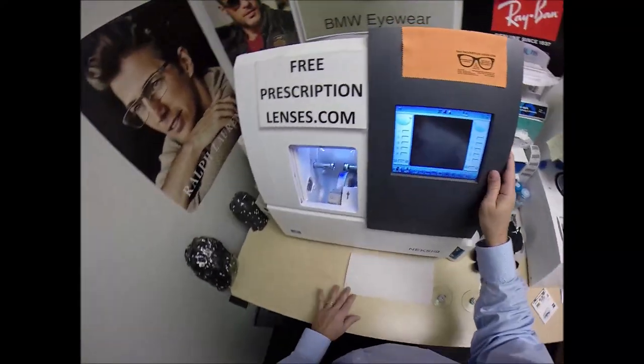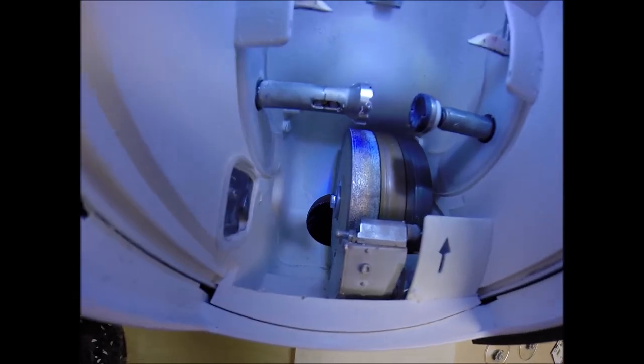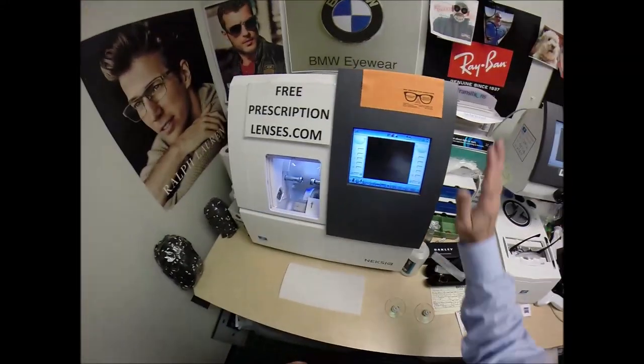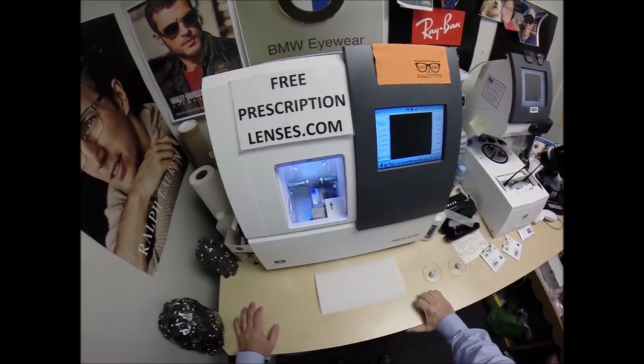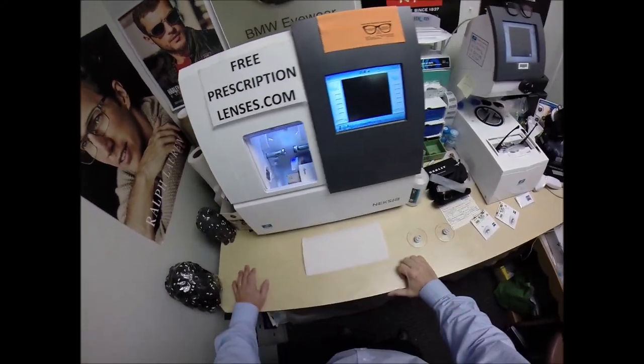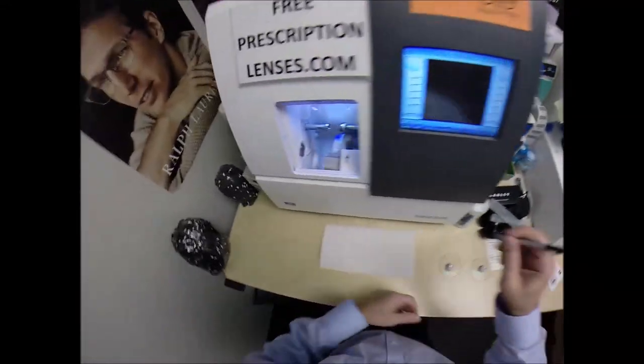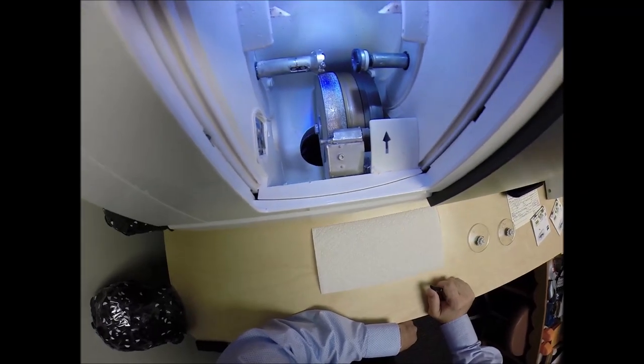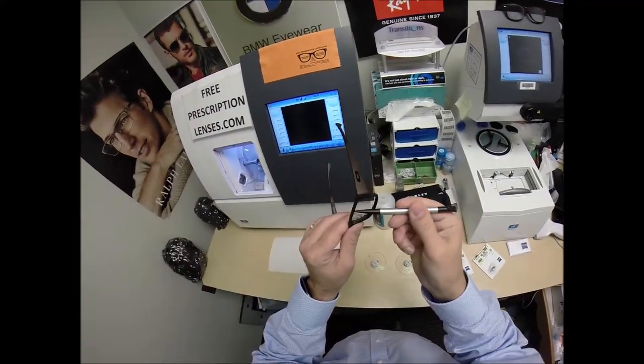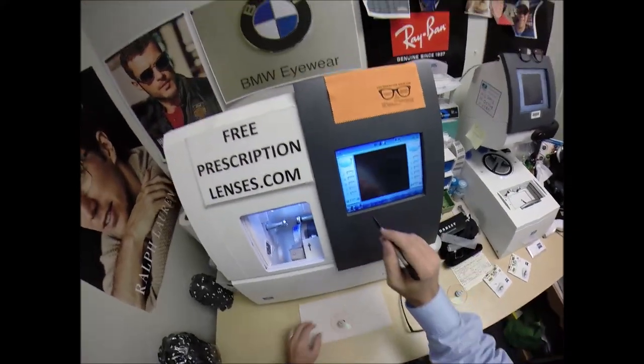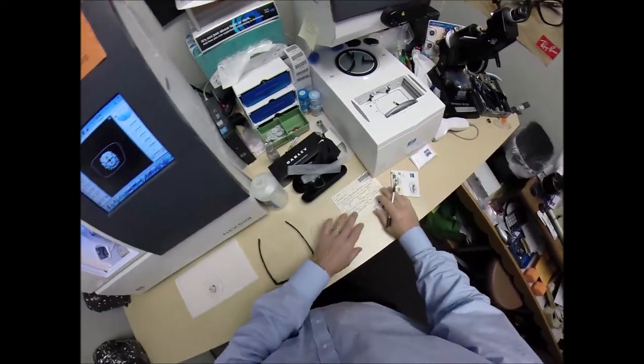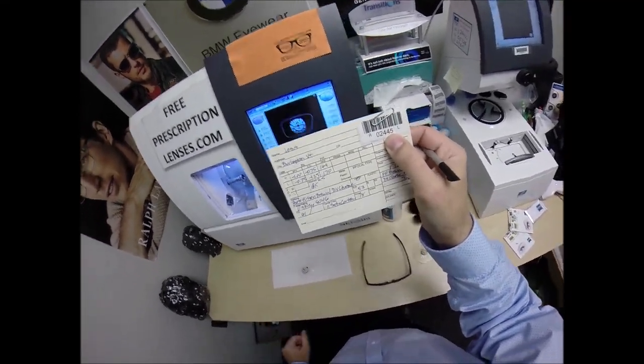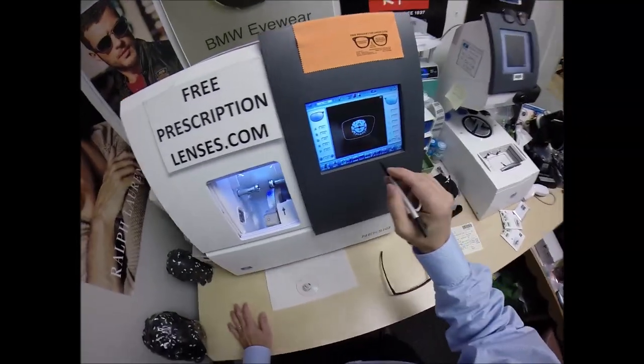For the lens that ain't right. Pull the paper away, make the black side sticky. Line up the magnet. Same pupillary distance for your left eye as it was for the right, that has mirrored over. Check to make sure the lens is large enough, it is. It's just a little thing I always like to do. Hit that button, the arm comes down and places the block onto the left lens. Now this is the edger. This is what's going to do all the work while I run my mouth. Now look, I cleaned it since my last video. Look at that inside, look how clean it is down there. No more just yuck. That's what I'm going to call it, yuck. But yeah, it costs $40,000, it weighs 200 pounds. I recommend everyone go out and buy their own, put it on your kitchen counter, then you can cut your own lenses at home, and you won't need this guy with the two thumbs and the bad jokes to do it for you.